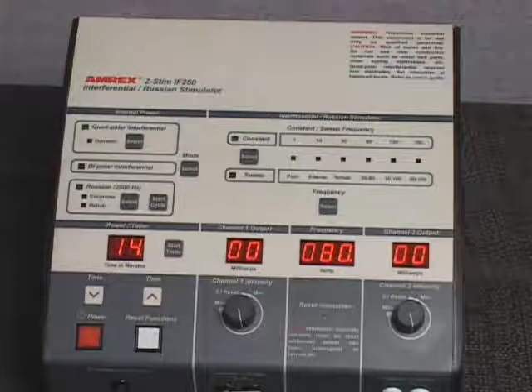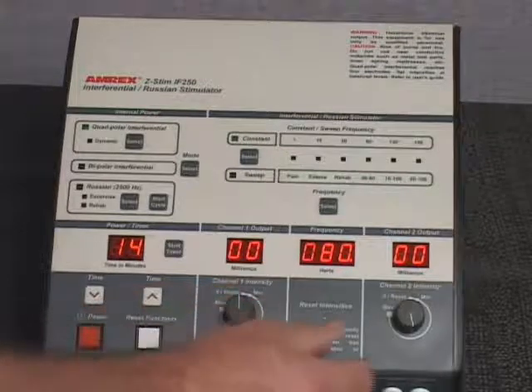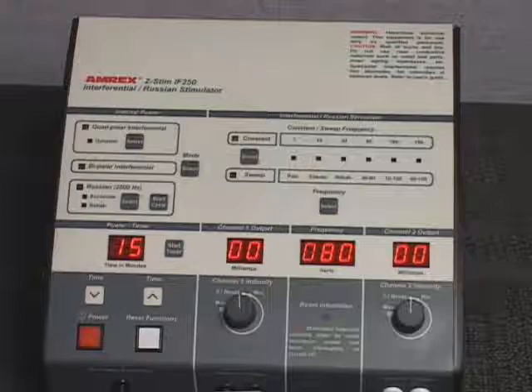The intensity displays reduce to 0. The reset intensities indicator light will flash and a sequence of audible signals will be emitted from the generator. Stimulator output cannot be resumed until the intensity controls are returned to the 0 reset position, enabling the audible clicks, which will turn off the reset intensities indicator light and the sequence of audible signals. The treatment time will default to the factory settings.